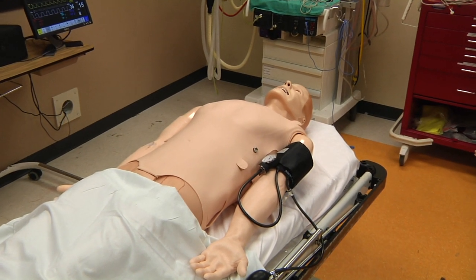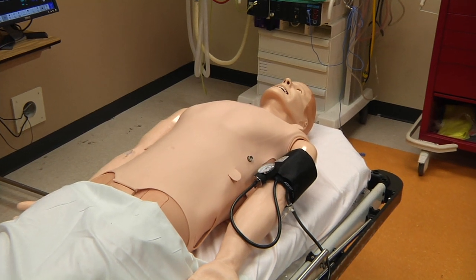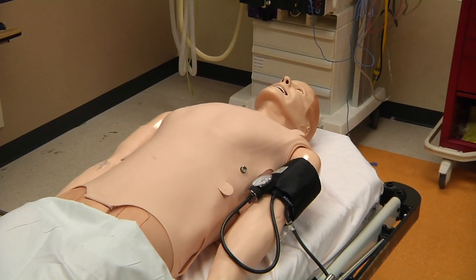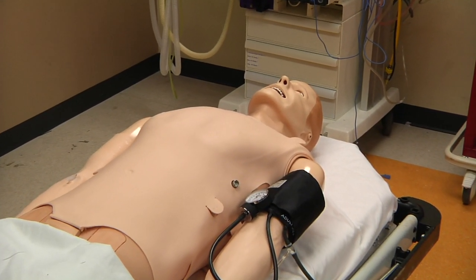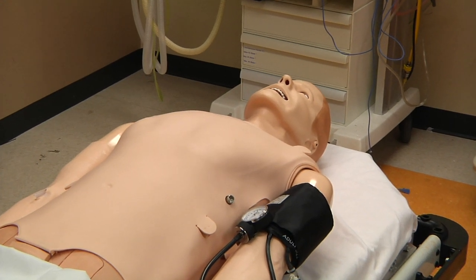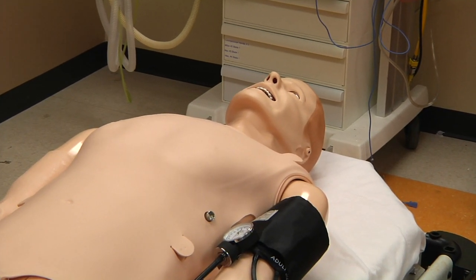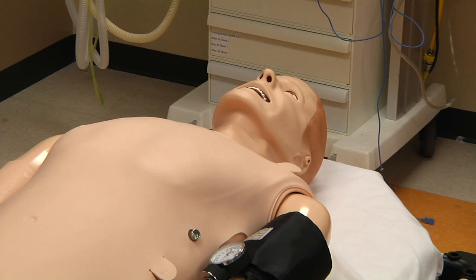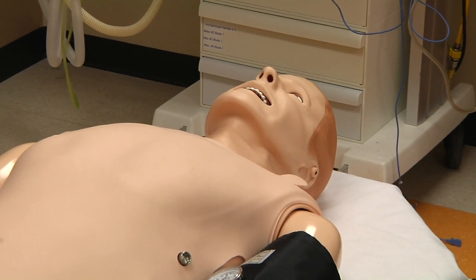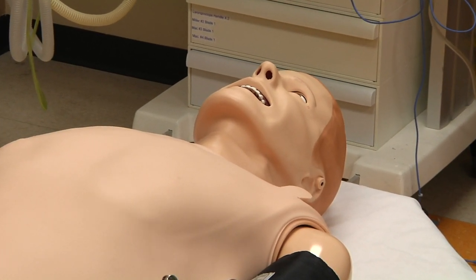As SimMan 3G has an anatomically correct airway down to the level of the bronchi, several airway management procedures are possible. In many cases, a head tilt, chin lift, or jaw thrust will be necessary for bag valve mask ventilation.